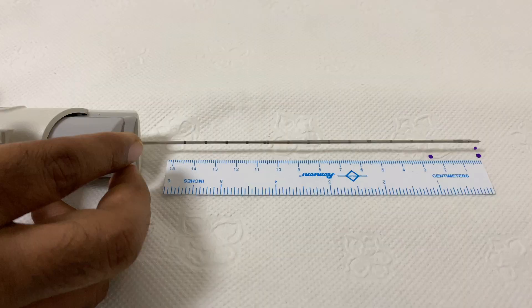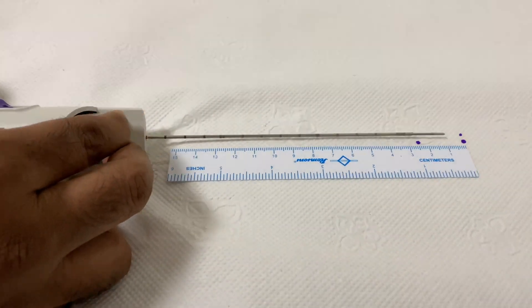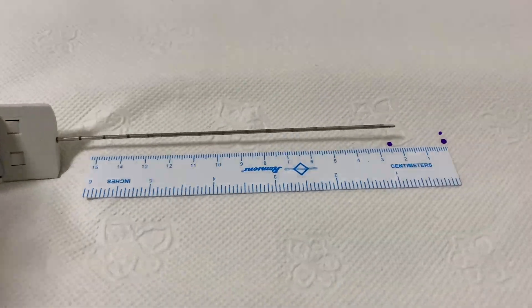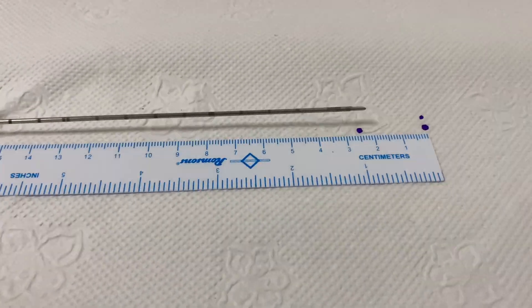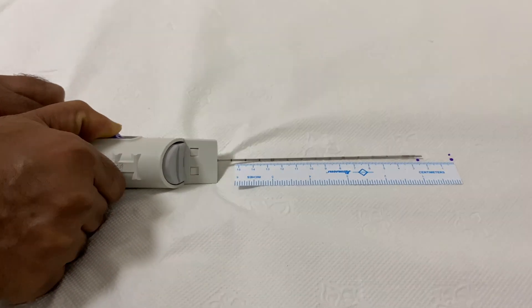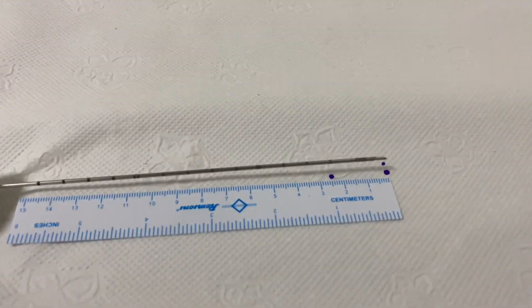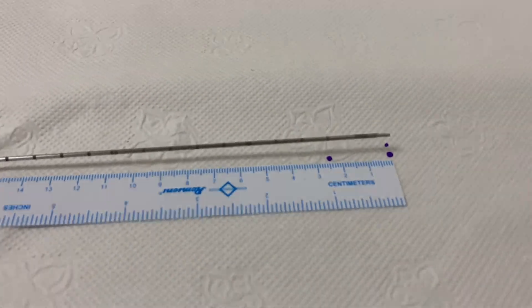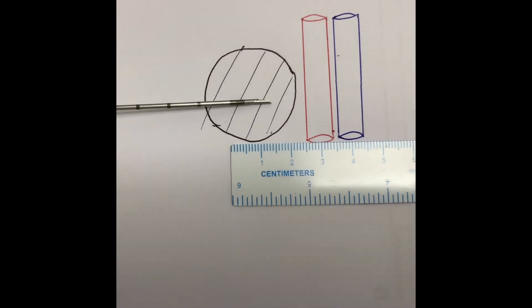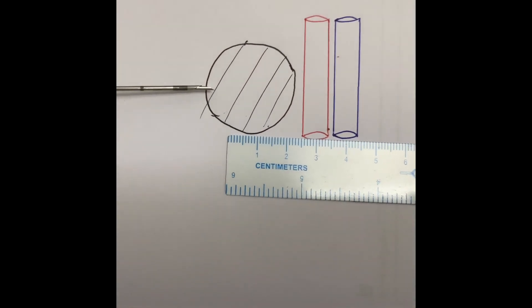There are two slides for this gun. The top slide is pulled back and locked, and the biopsy sample notch gets exposed. The next slide is also pulled back and now the instrument is energized and ready to be fired. Penetration depth is 22 millimeters, that is 2.2 centimeters. This is very important information to know, because when we fire, the tip of the biopsy needle should be three centimeters away from any important structures like vessels or nerves, so as not to injure them or land up in complications.